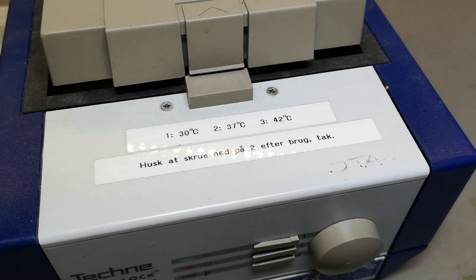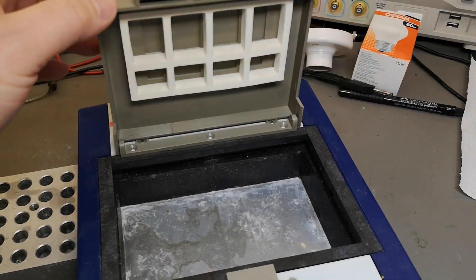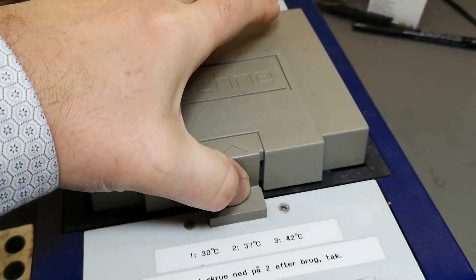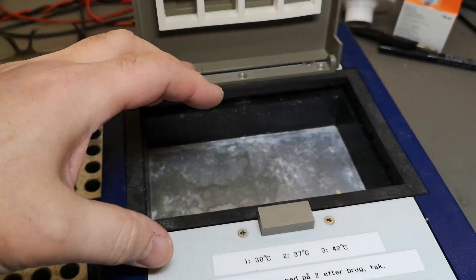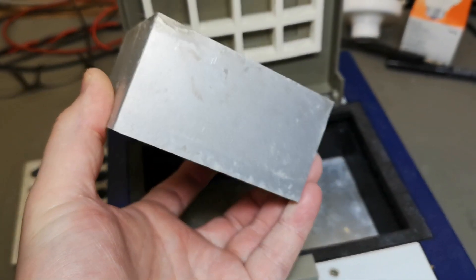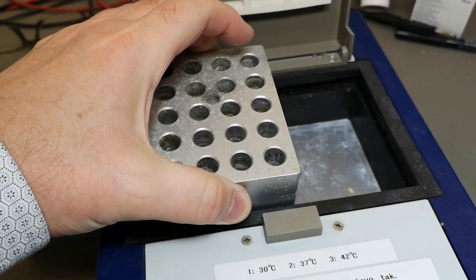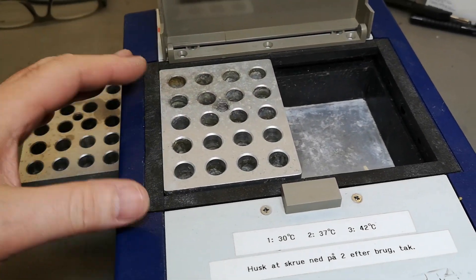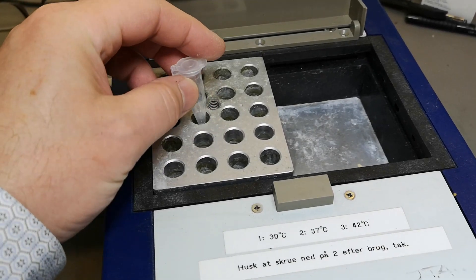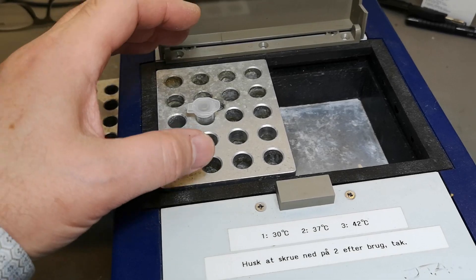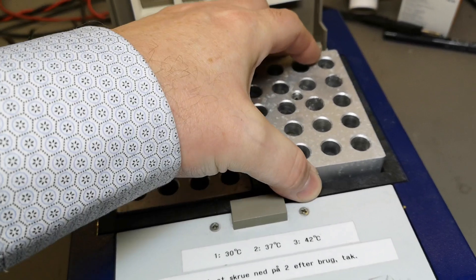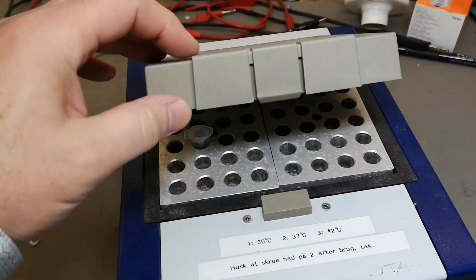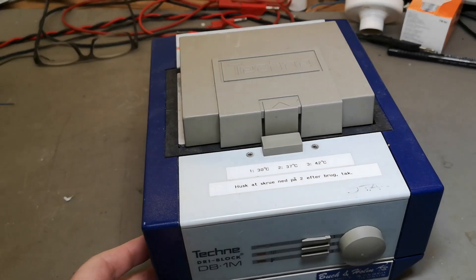Then there is an on-off switch on the back. So in here you can open and close it. In this hole you can have those two really big and heavy and solid aluminum blocks so they fit quite good here, and then you can take your scientific medical samples and stick in here so you can run like 40 tests in parallel.